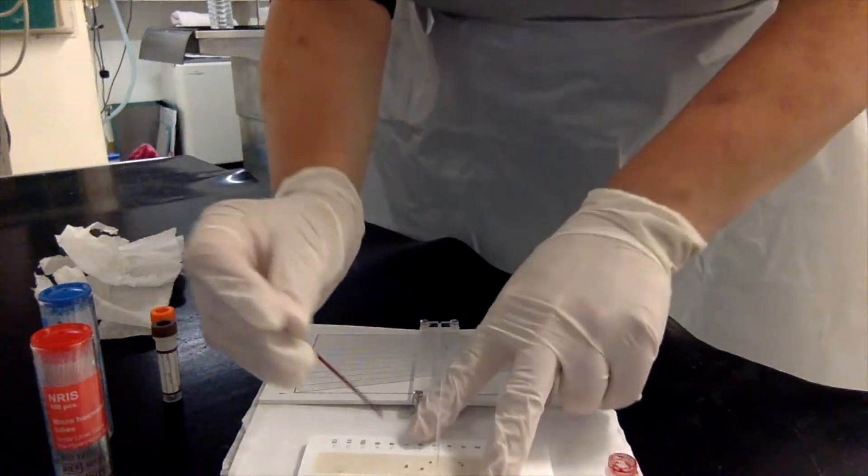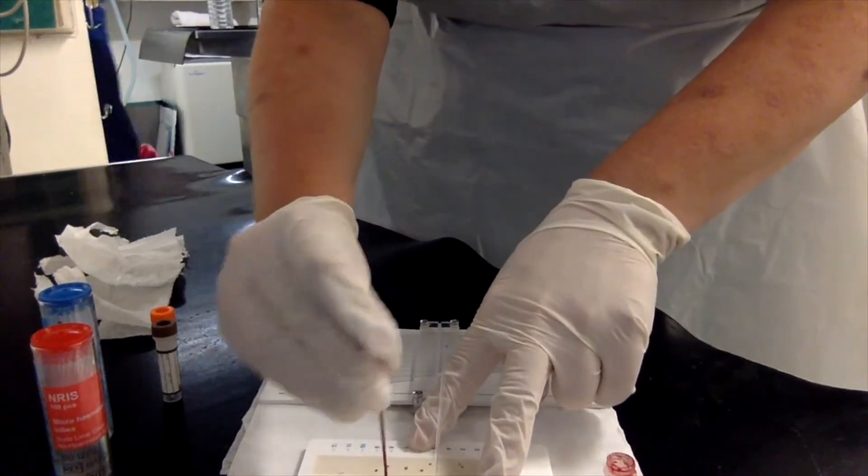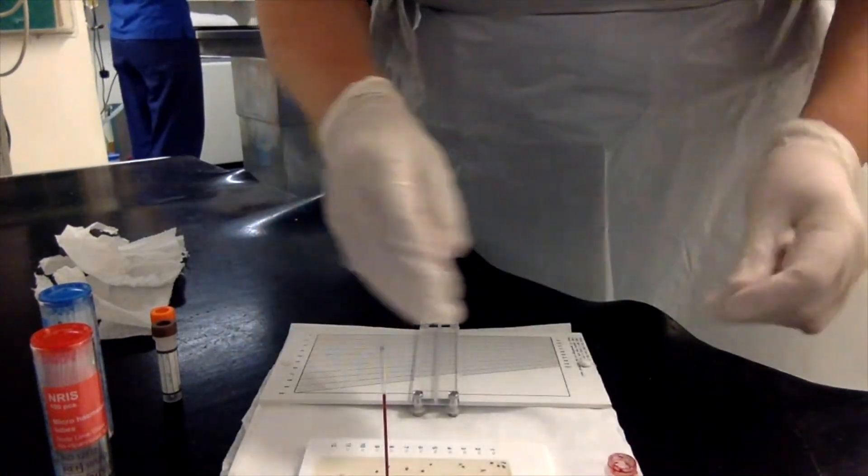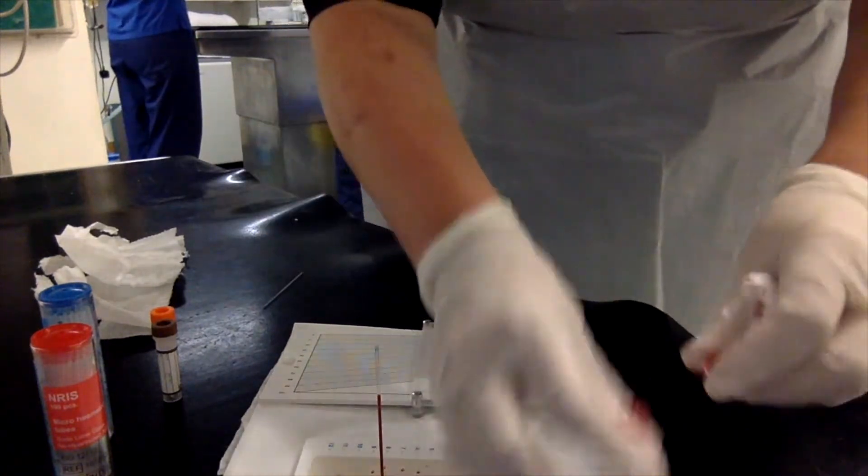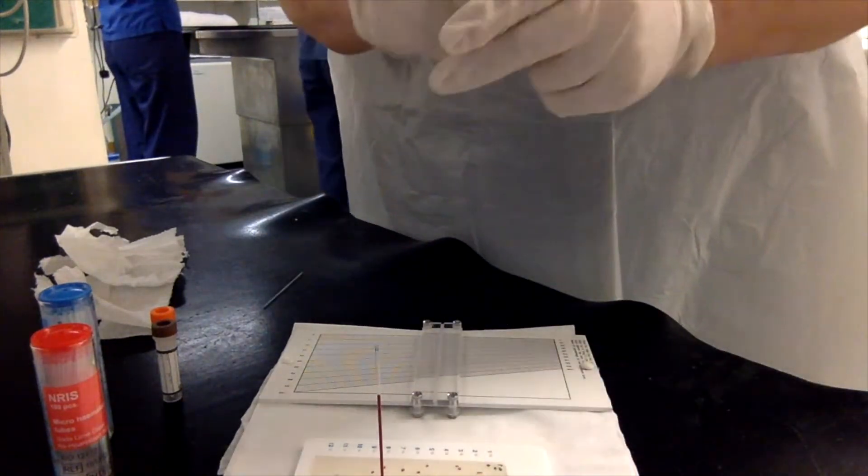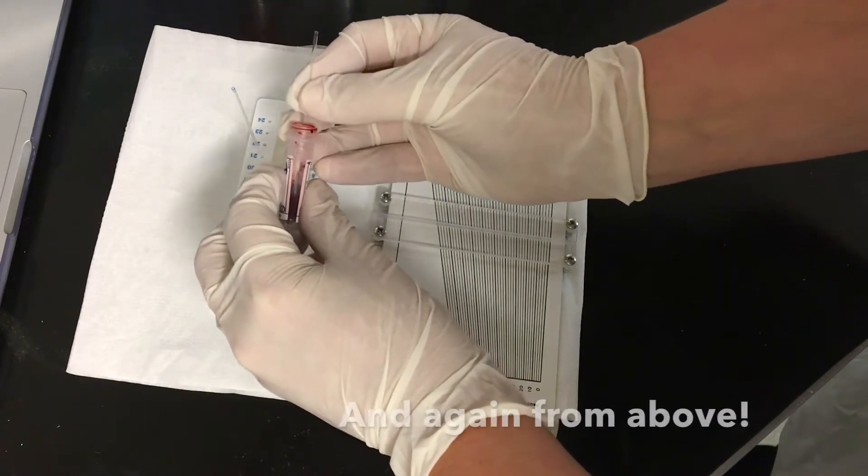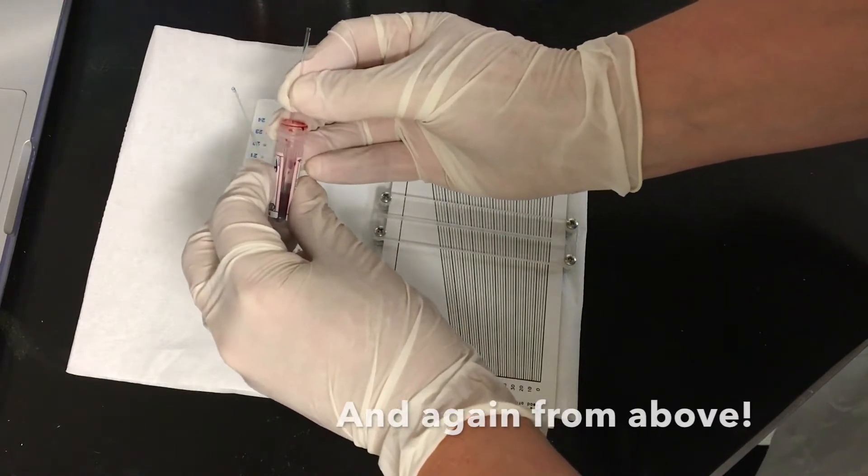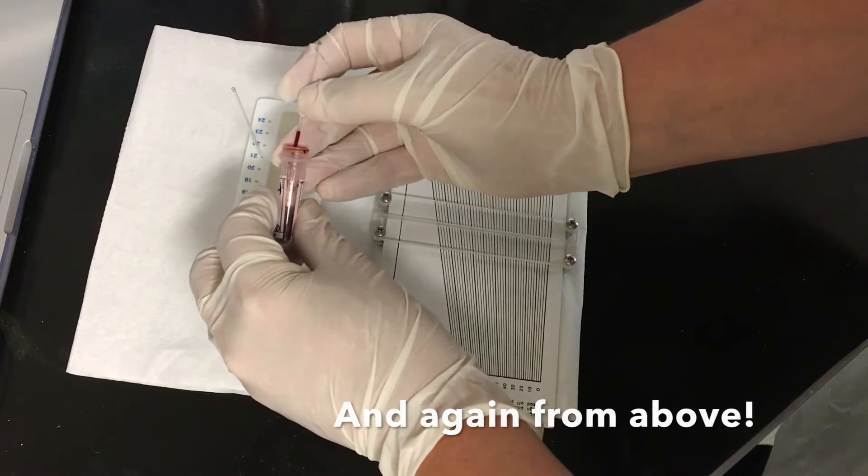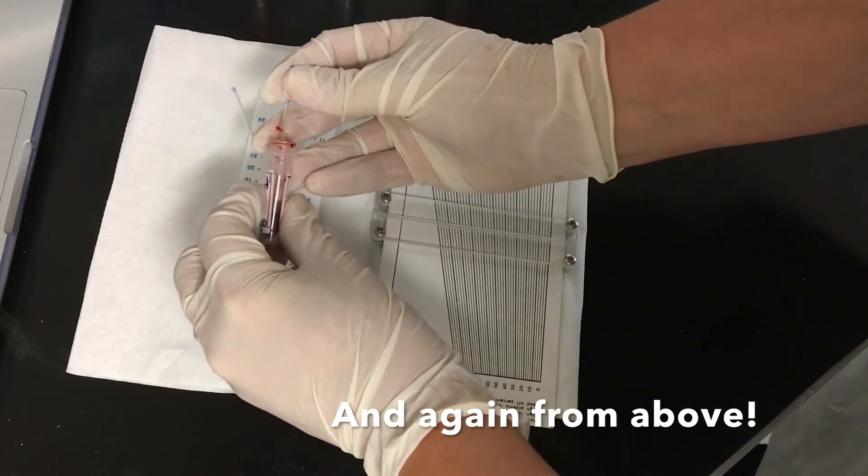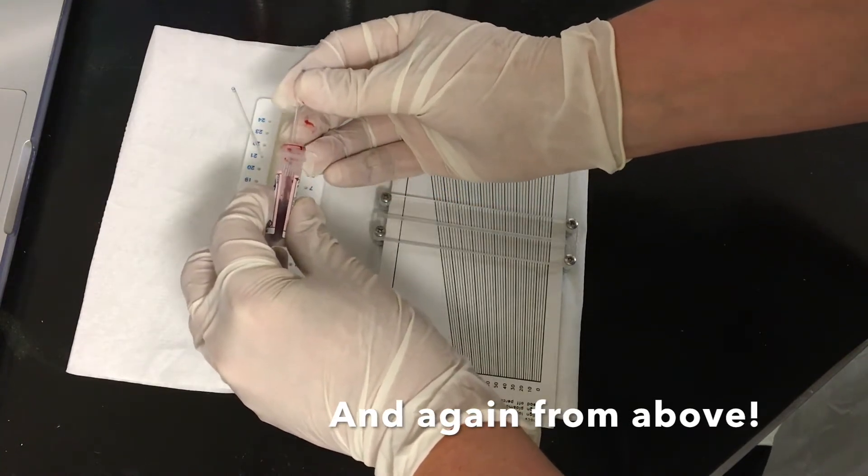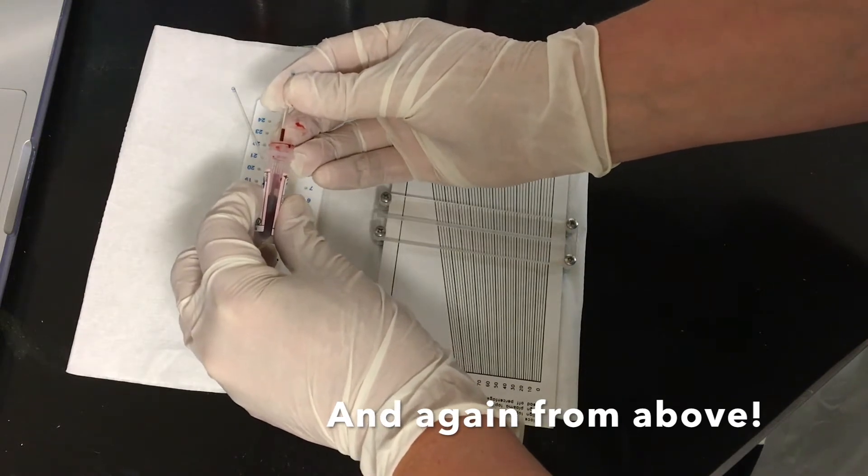Put your finger on the end, hold the tube and wipe, and then place in the crystal seal at least twice to get a decent plug and repeat. I want to fill this about three quarters full, so I'm holding my fingers where I think it will be, and you might need to tip the tube depending on how good the blood is.